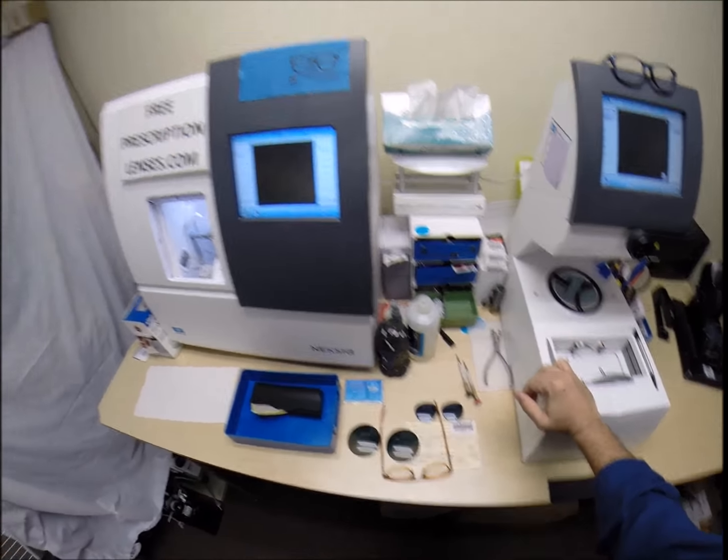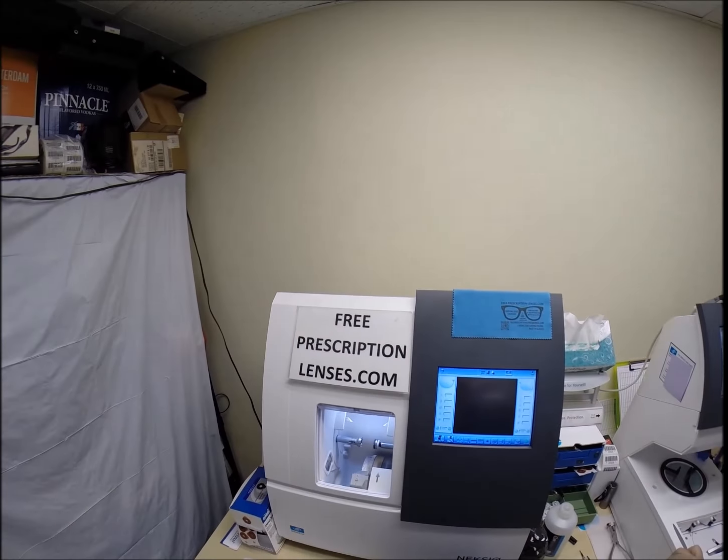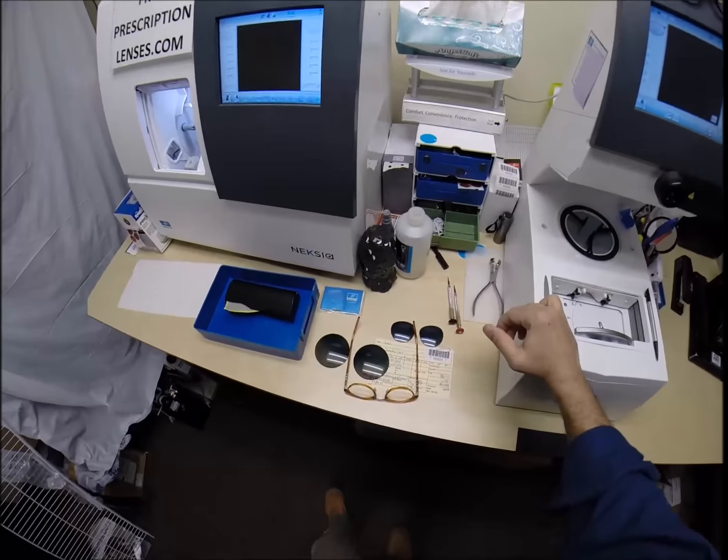Hello Juan in La Canada, California. Seymour Better here with FreePrescriptionLenses.com and today I'm going to get to do a new type of lens.